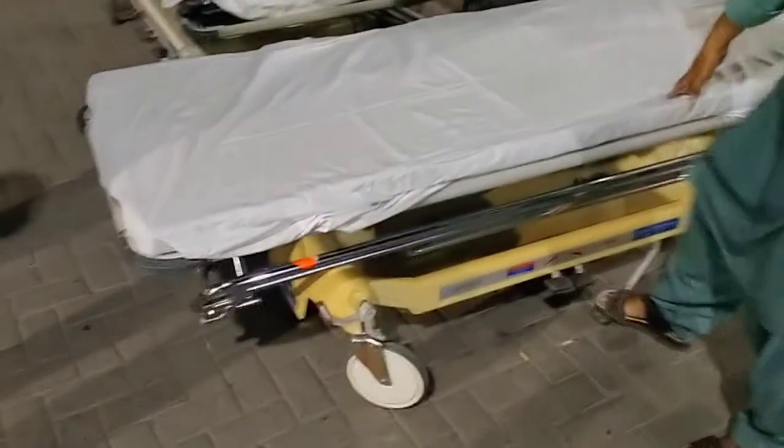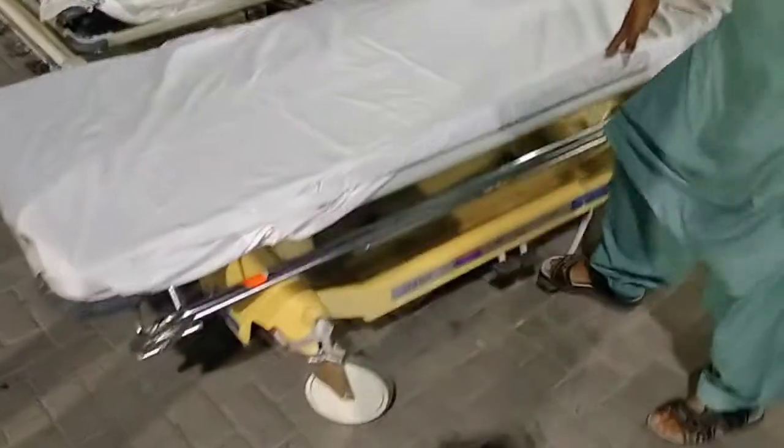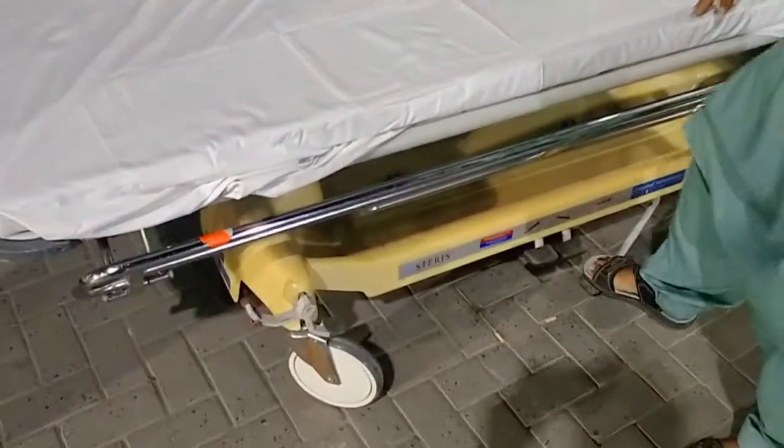These are hydraulic stretchers. If you see it from the outside, these are three levers. They are pressed by one lever and you can see it from the distance.